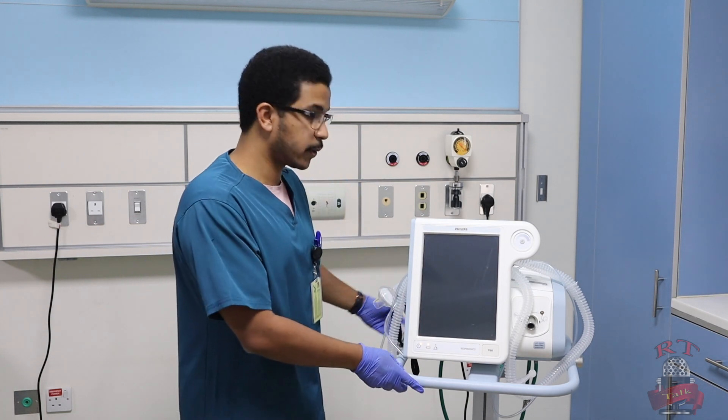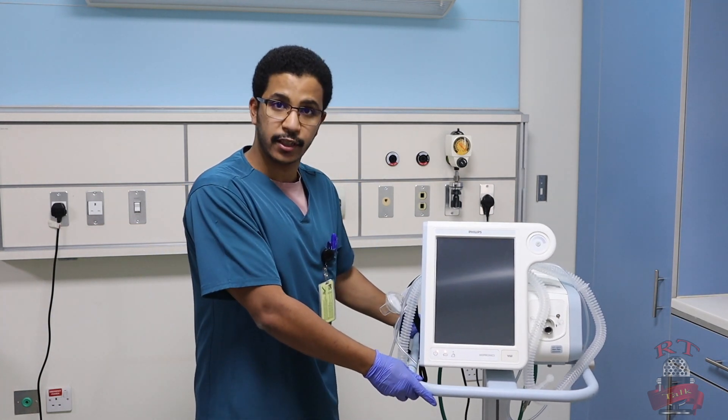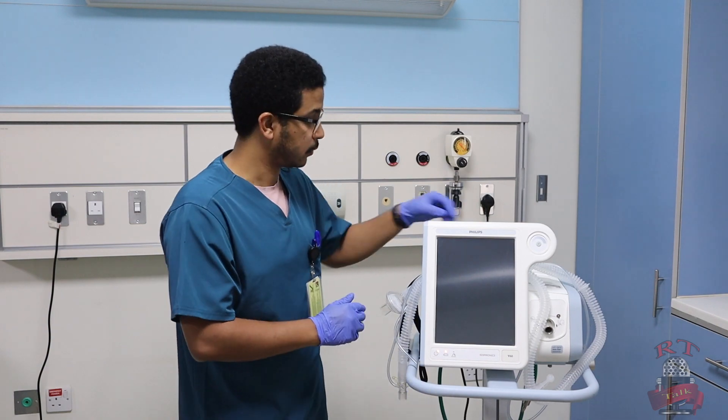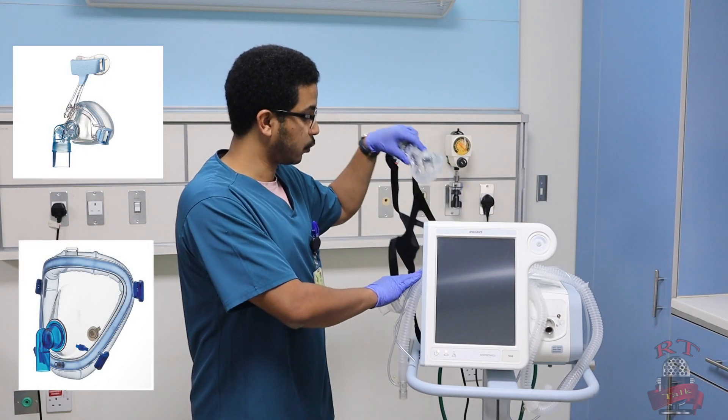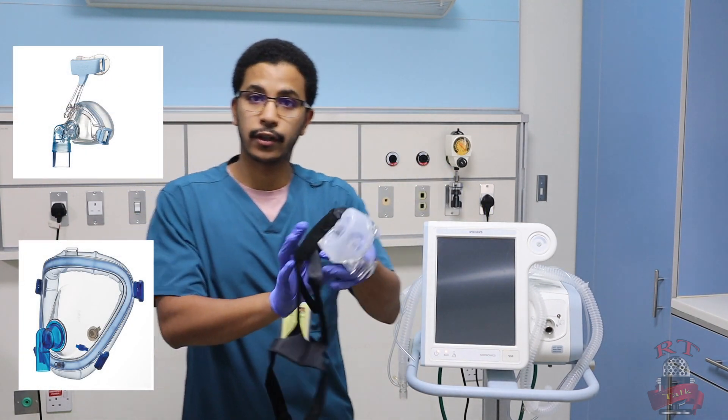It will give us CPAP and BiPAP. So first, you have to prepare your equipment. You will bring your machine and the interface that you will use with your patient. This is what we call the interface.